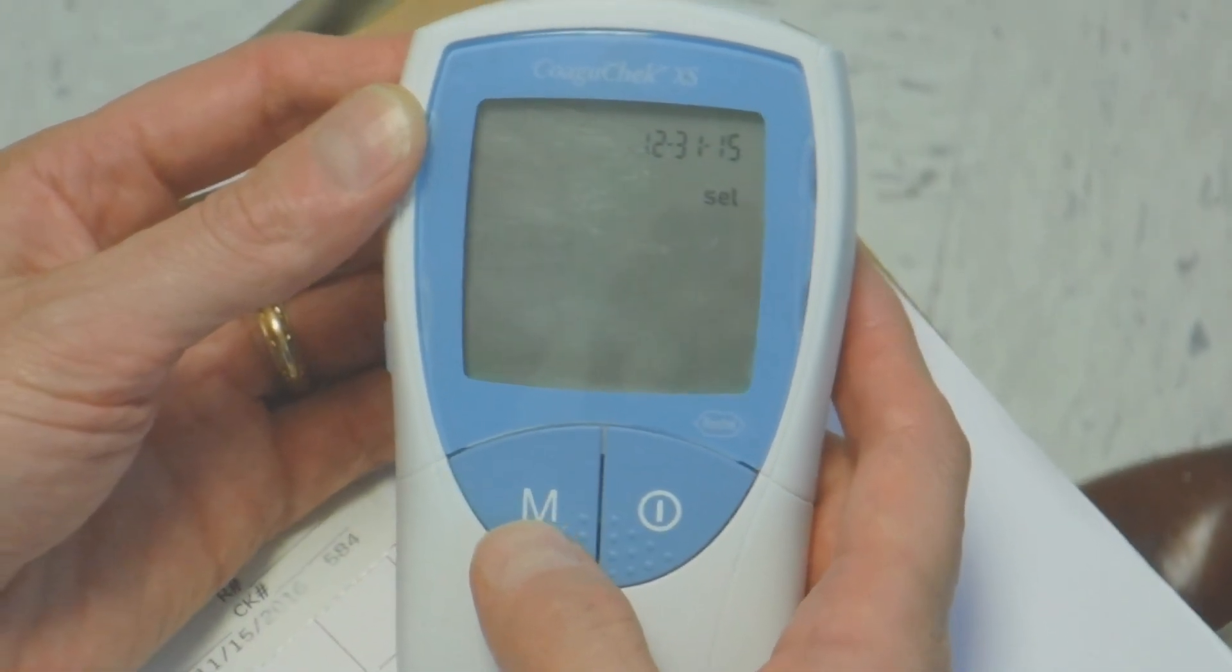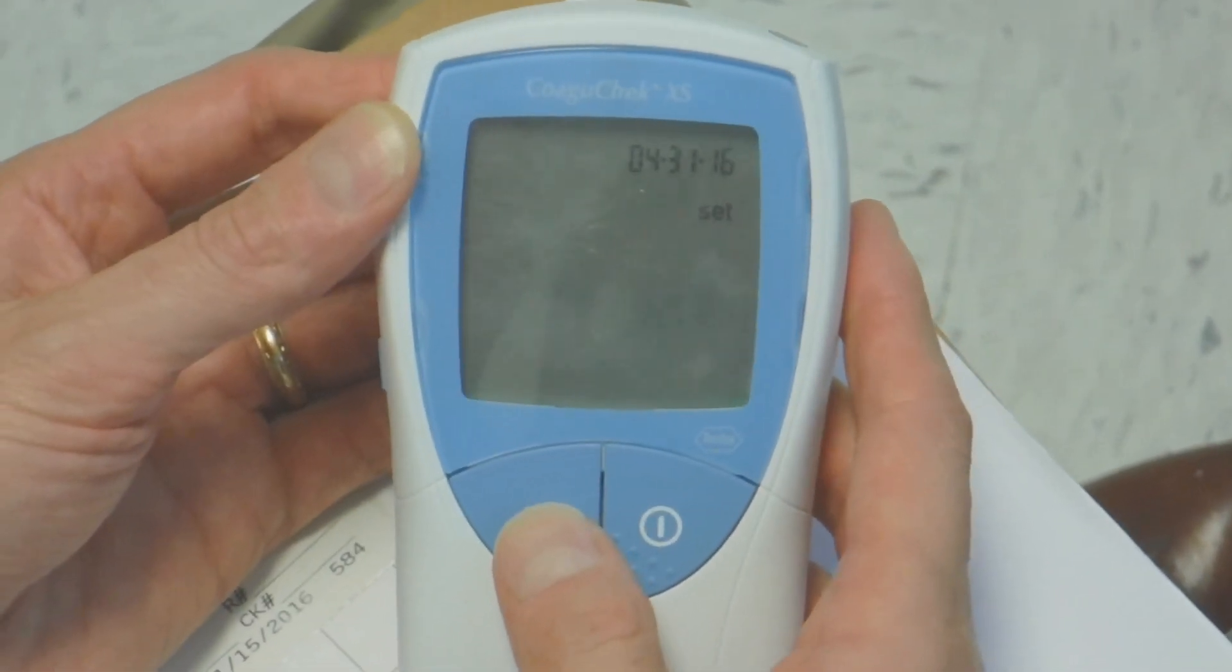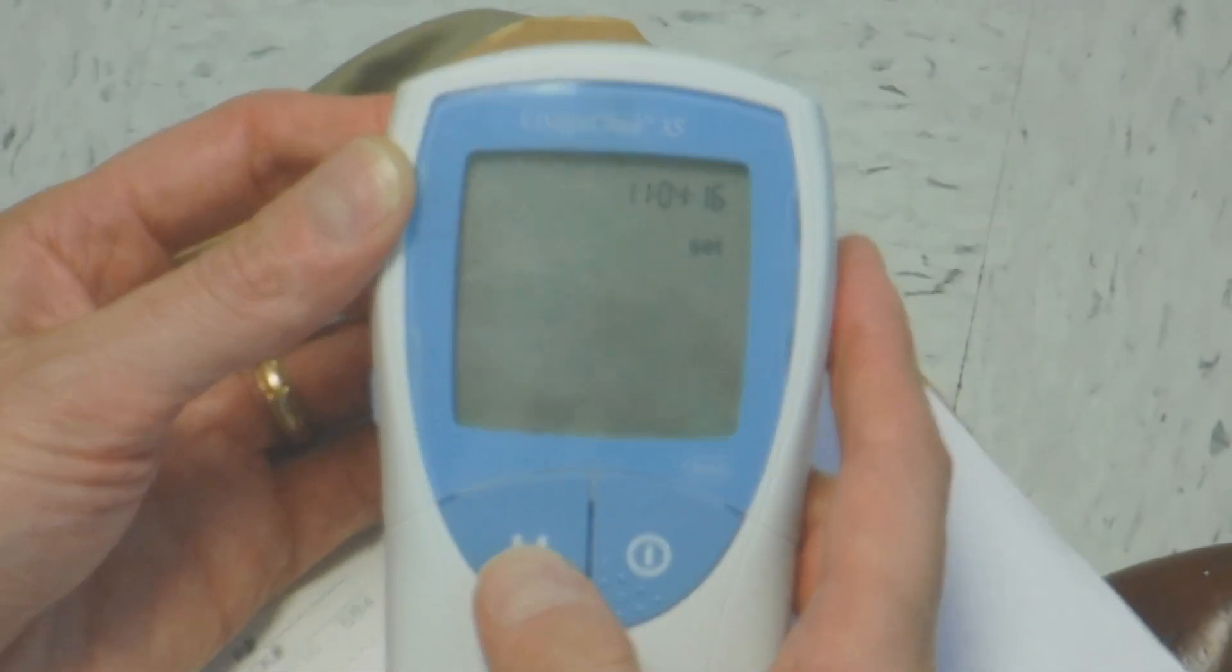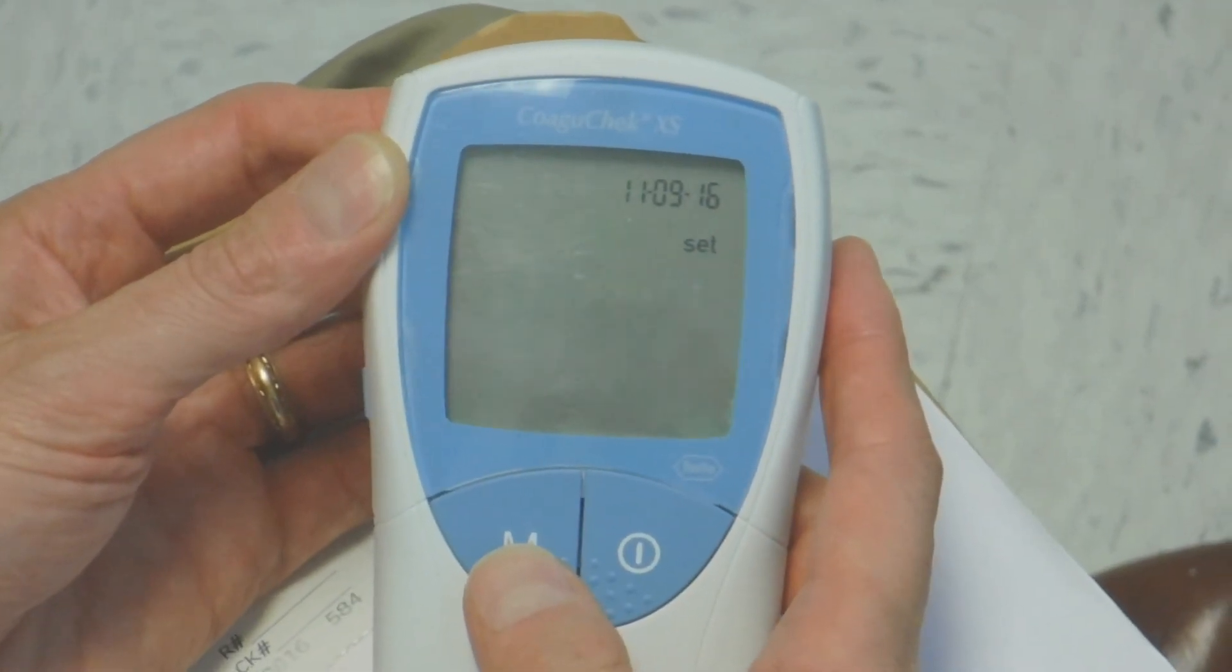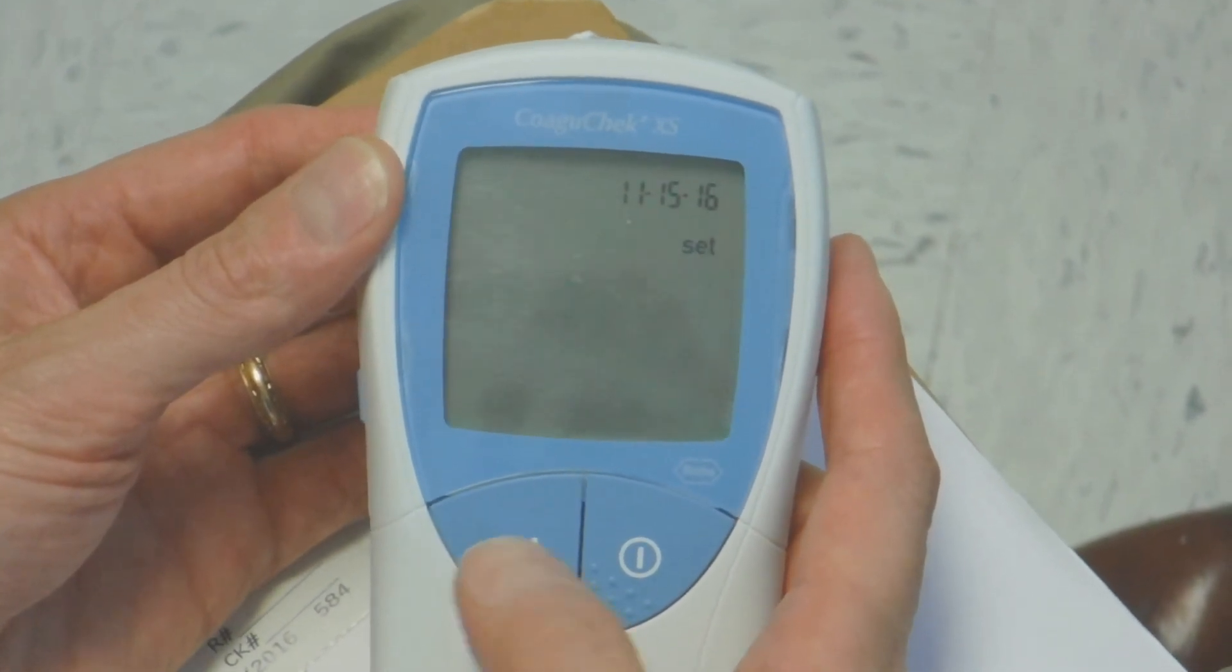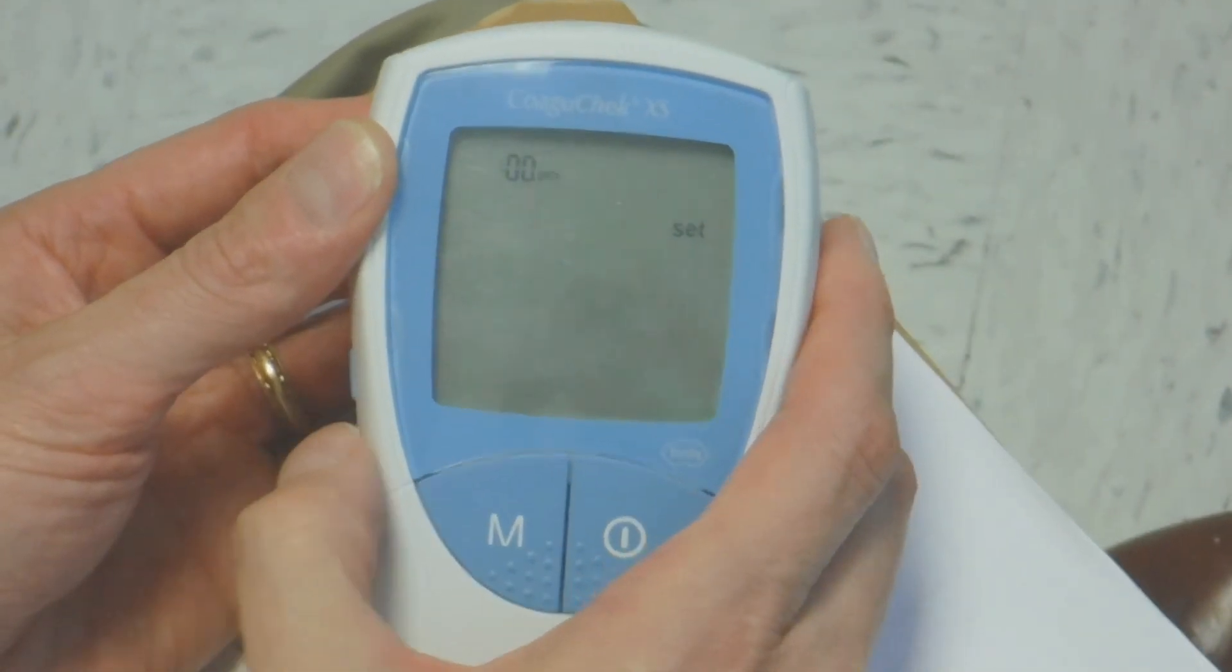I didn't know he was going to change the batteries today. I had him grab it from the office where I left it this morning, and he measured the other batteries and they were low. When I first got it from the internet, it had the right date and time on it, which was pretty cool.